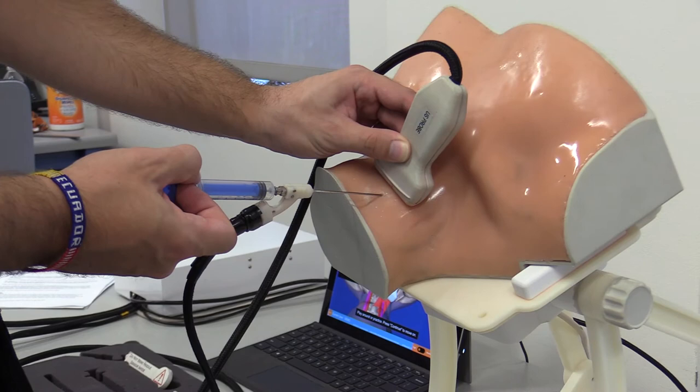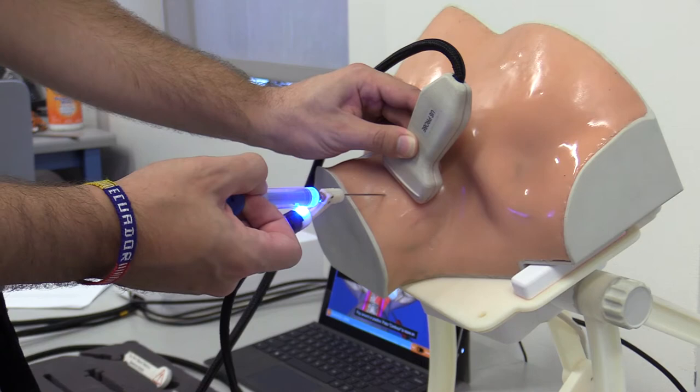An Arduino is used to provide additional features to the tracked tools, such as loss of resistance on the syringe, syringe flash, tactile thump, and vein compression from the ultrasound.